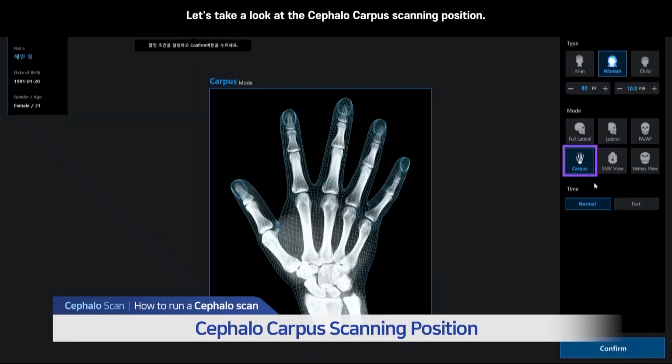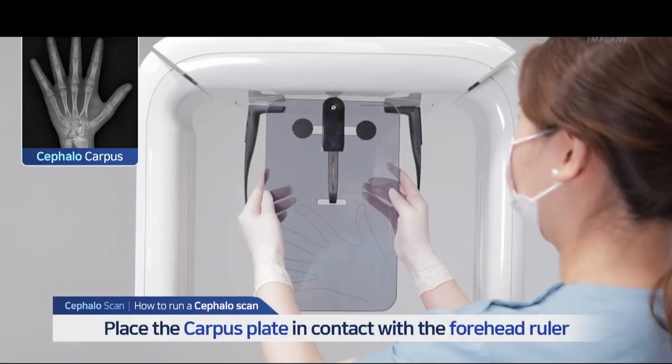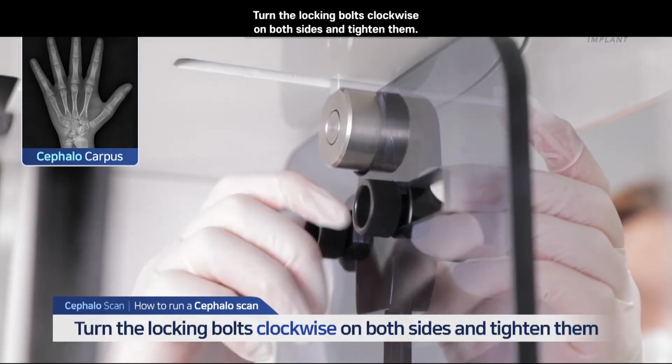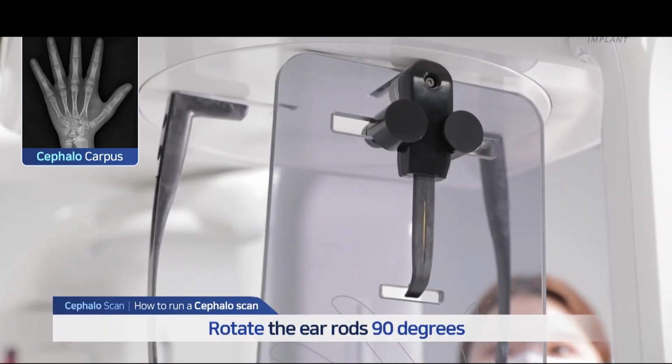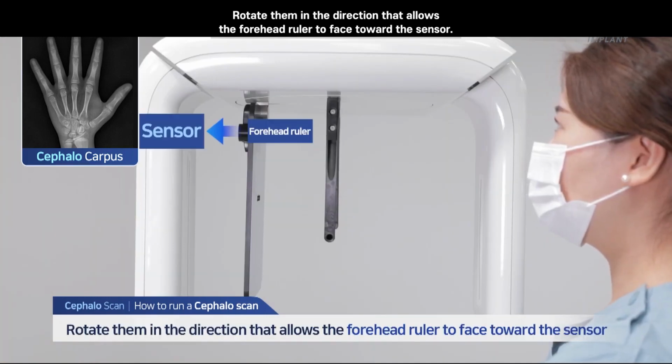Let's take a look at the cephalocarpus scanning position. Place the carpus plate in contact with the forehead ruler. Turn the locking bolts clockwise on both sides and tighten them. Hold the ear rods and rotate them 90 degrees. Rotate them in the direction that allows the forehead ruler to face toward the sensor.